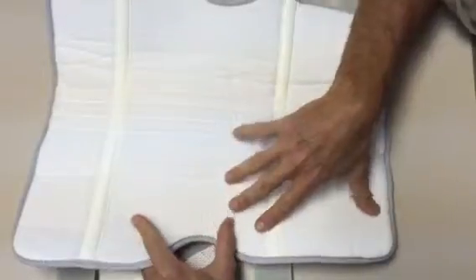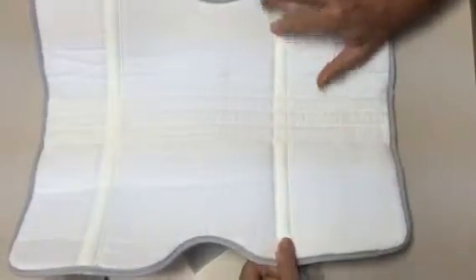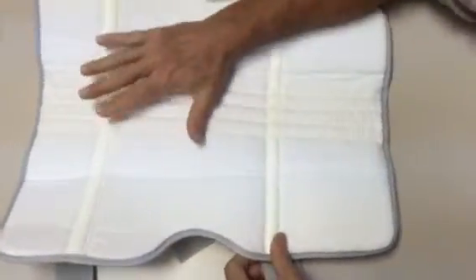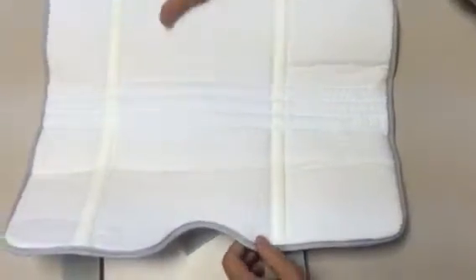That brushed nylon lining would be an extremely hot item. This product uses a 100% cotton flannel lining on the inside with an anti-migration strip, both just above the gastroc and around the thigh itself.